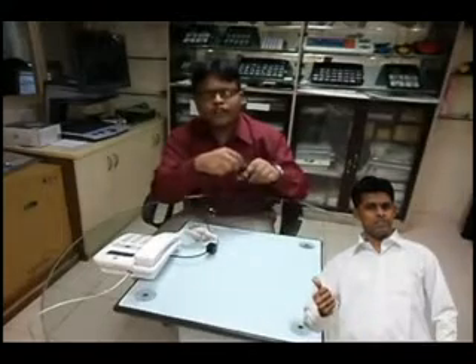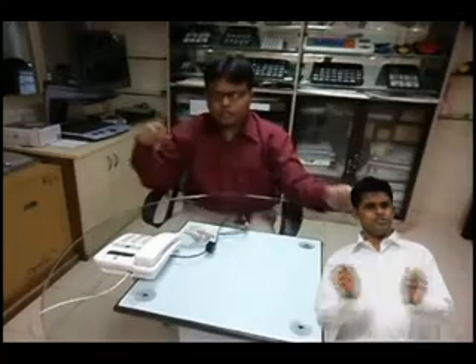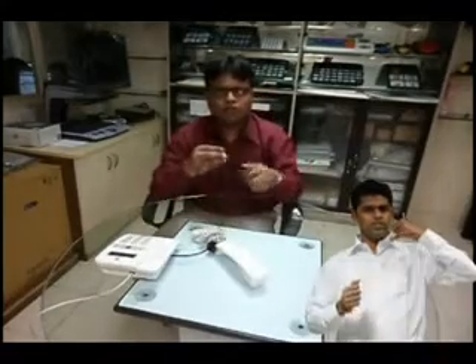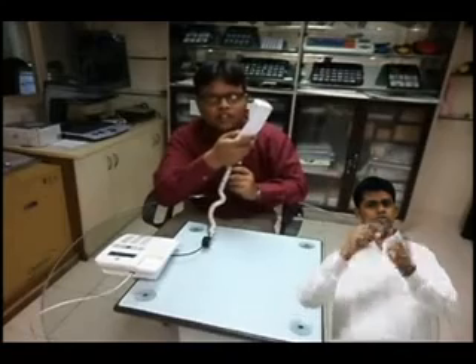Once you connect the Telephone Kit with your Listener Pro and the telephone, you can listen to the caller's voice or the dial tone on your phone directly with the Listener Pro. And simultaneously you can speak into the receiver so that the person can listen to you.